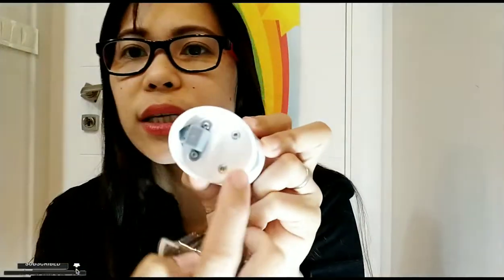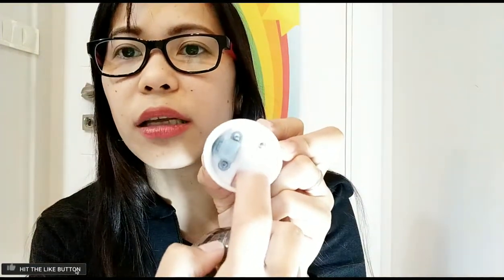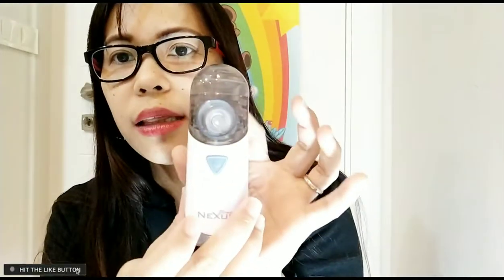Because if you don't always clean it and make it dry, it gets hot — which I think is dangerous, maybe it will even explode. So always make sure this part is dry, because it is connected to the electric. You can see this connection here — they are connected, and you turn it on like that.